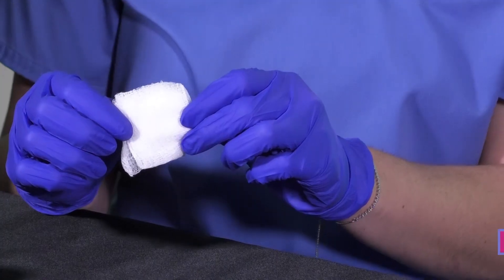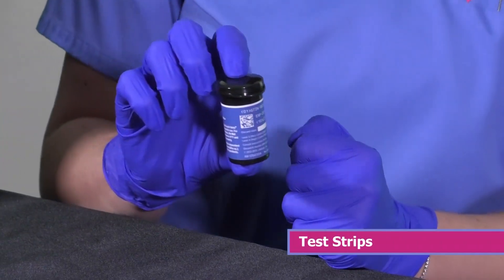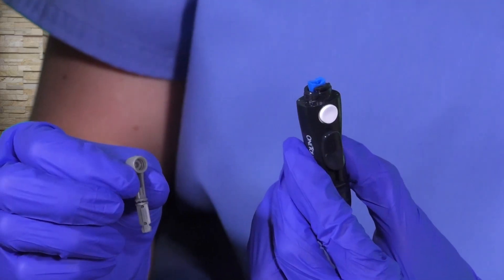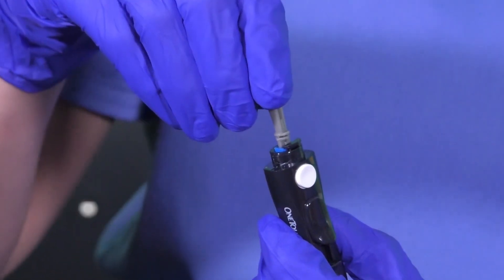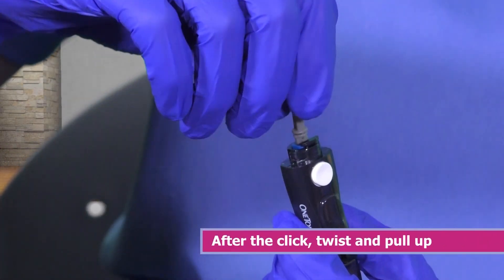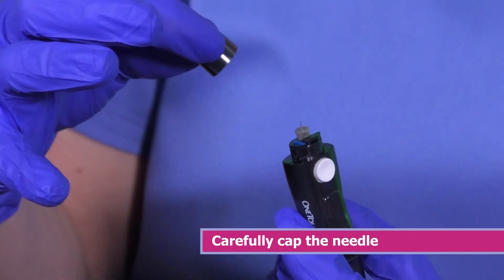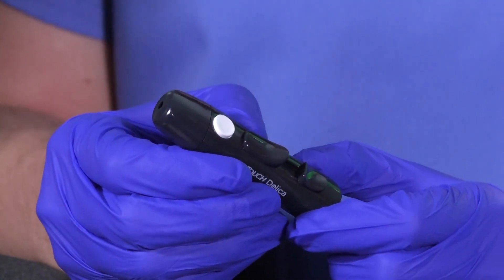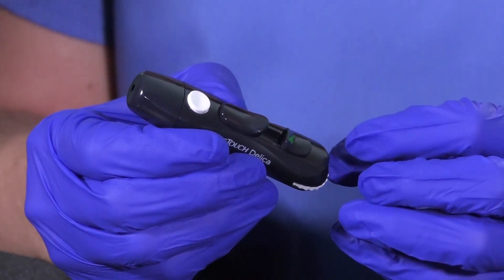To set up your lancet device, you're going to remove the top of it. Take your lancet needle and insert it into your lancet device — you might hear a click when you do this. Twist the top of your needle off, pull up, and then carefully cap your needle on your lancet device. Your lancet device has more than one button. Usually the only push button is the one that you use to launch your needle when you're ready for your test. There's another button — usually a sliding button or a pullback mechanism — and that is to load your needle, in other words, get your needle in the right position for the test.